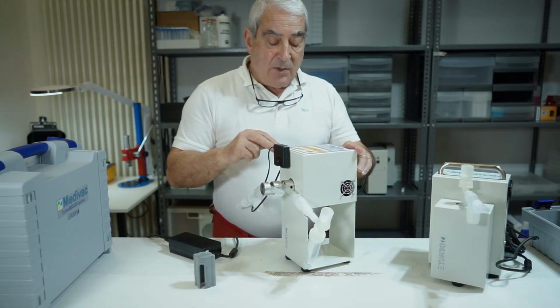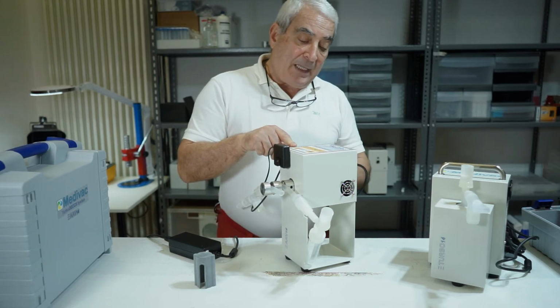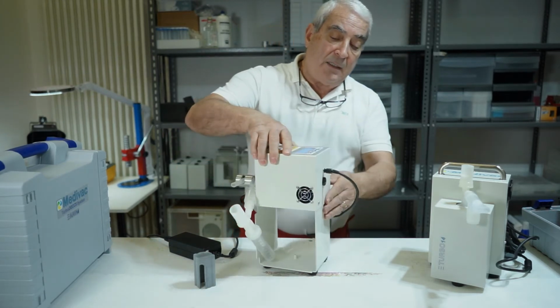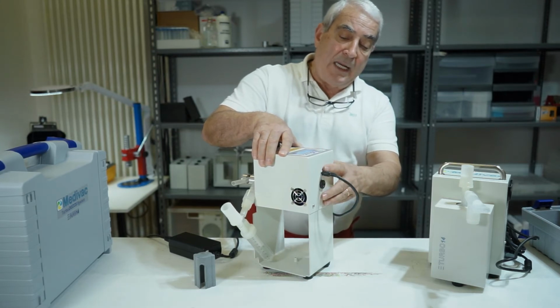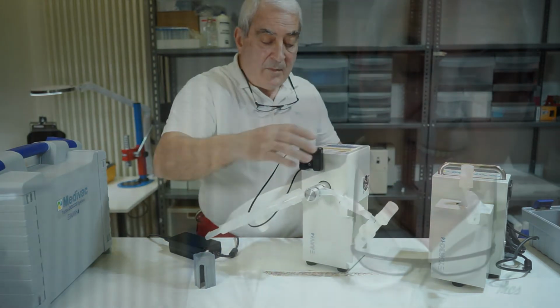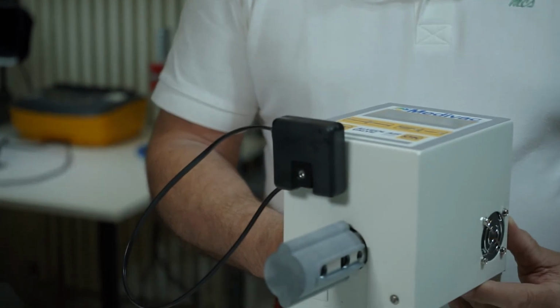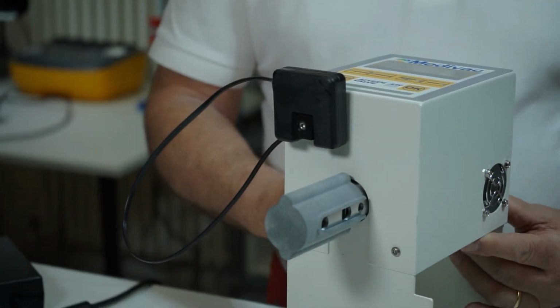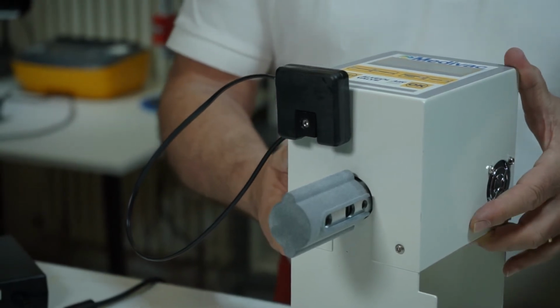The power switch is on the left side of the AAV, while in the rear you will find the electronic protection fuse and the power connector. The AAV can be used by itself in case we want to collect VOC, or it can be utilized if you want to collect the EBC. In that case, the turbo must be assembled in series with the AAV.